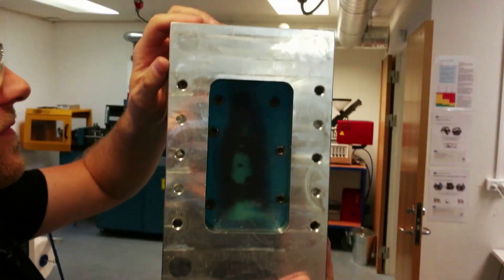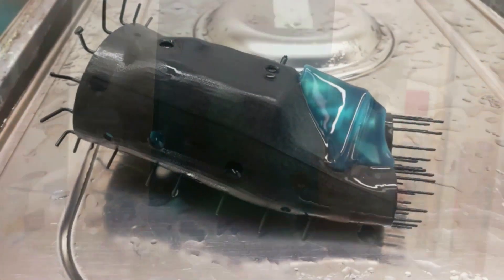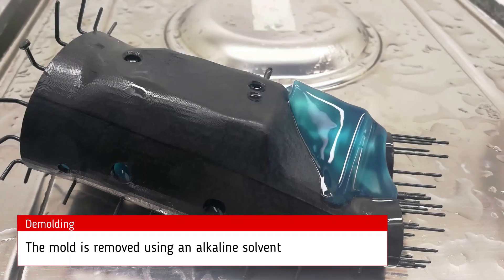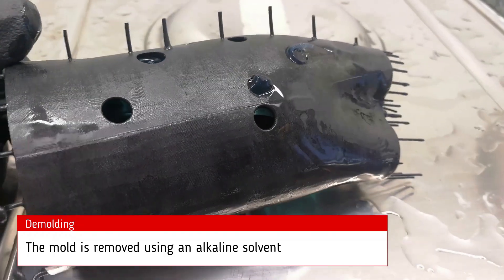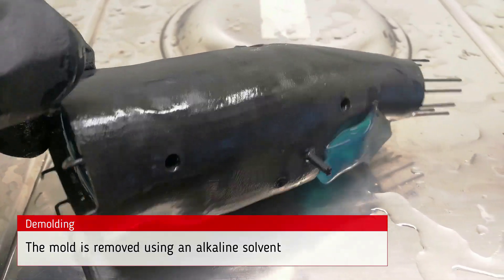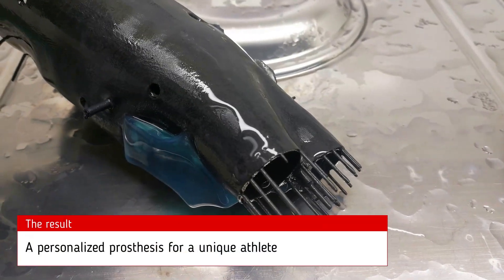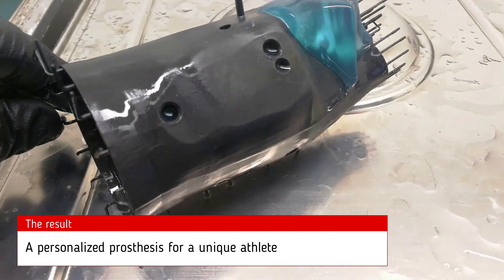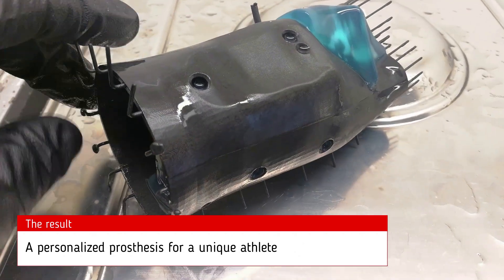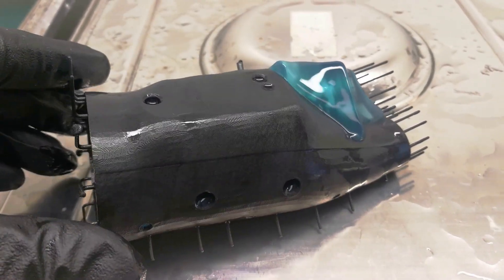And what we have here is the result. Excited to see what comes out of this one. Ladies and gentlemen, I present to you the first fully molded prosthesis that has come out of a free-form injection molding process. This one is for Mr. Peter Rosenmeier, world-class table tennis athlete. It's a pretty significant moment in the history of body-fit. It shows what can be done in mass personalization if you have access to the right materials and the right platform.